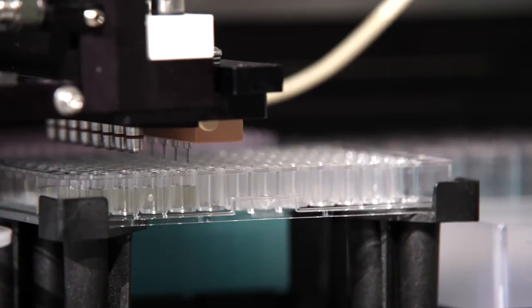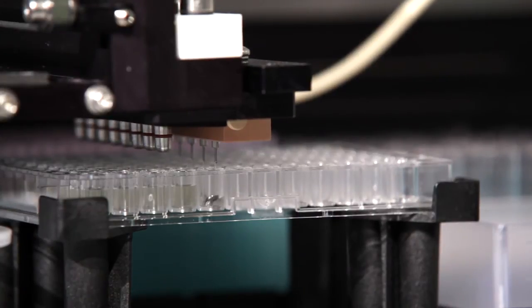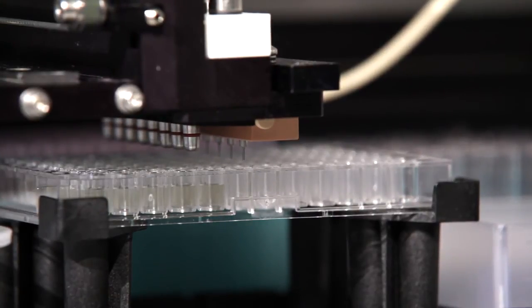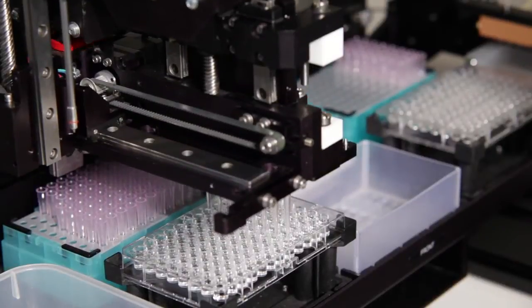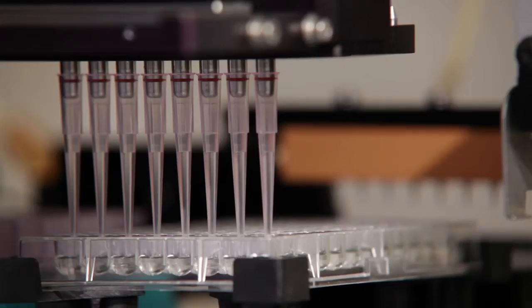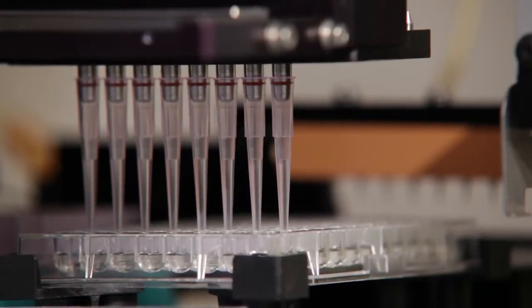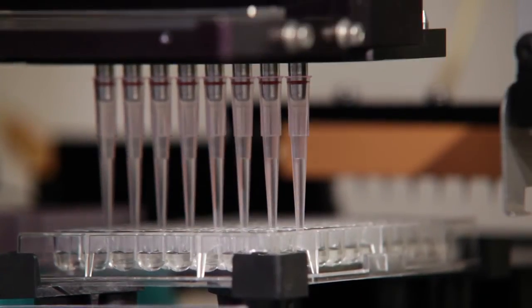Depending on the rack size, up to 40 sample tubes can be handled. This means even up to 100 tests per hour can be performed. During the Precision XS operation, the lab personnel gains time for other duties.